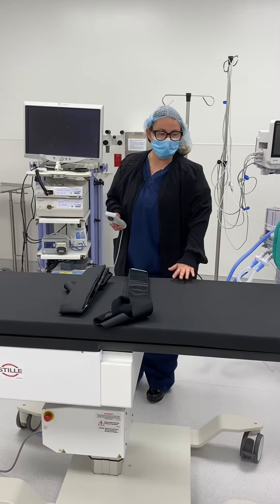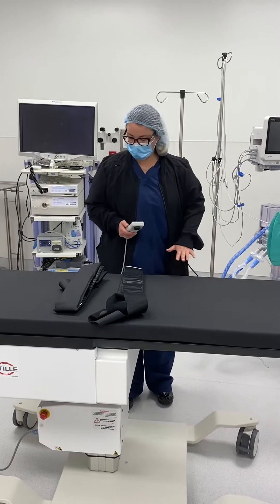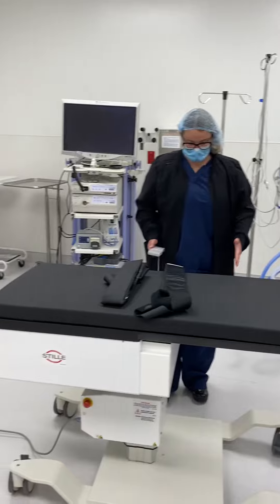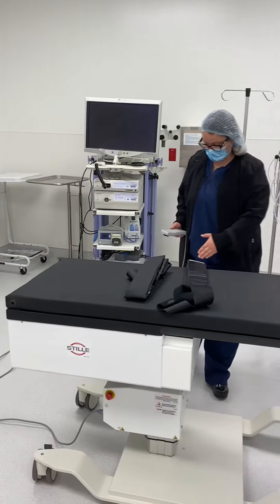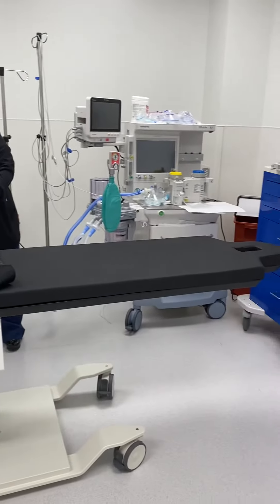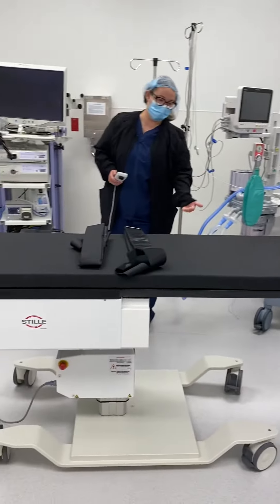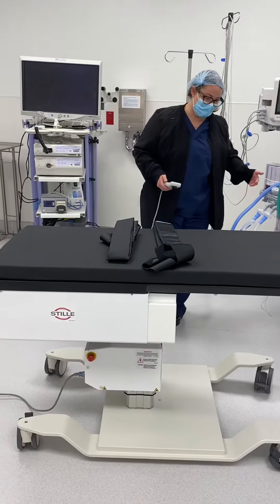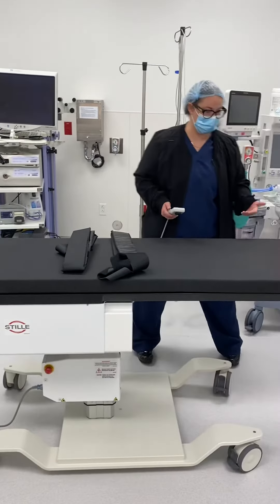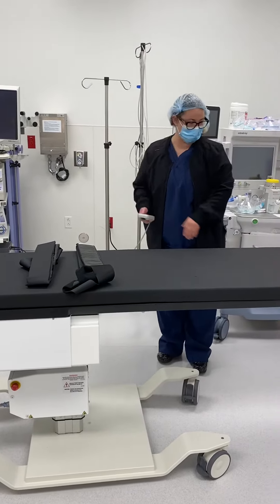This is our pain table that we have here at ISOC. It's common to most. It is nice that it has this base here at the end of the bed, which allows for the C-arm to come in under and image without there being any interference.